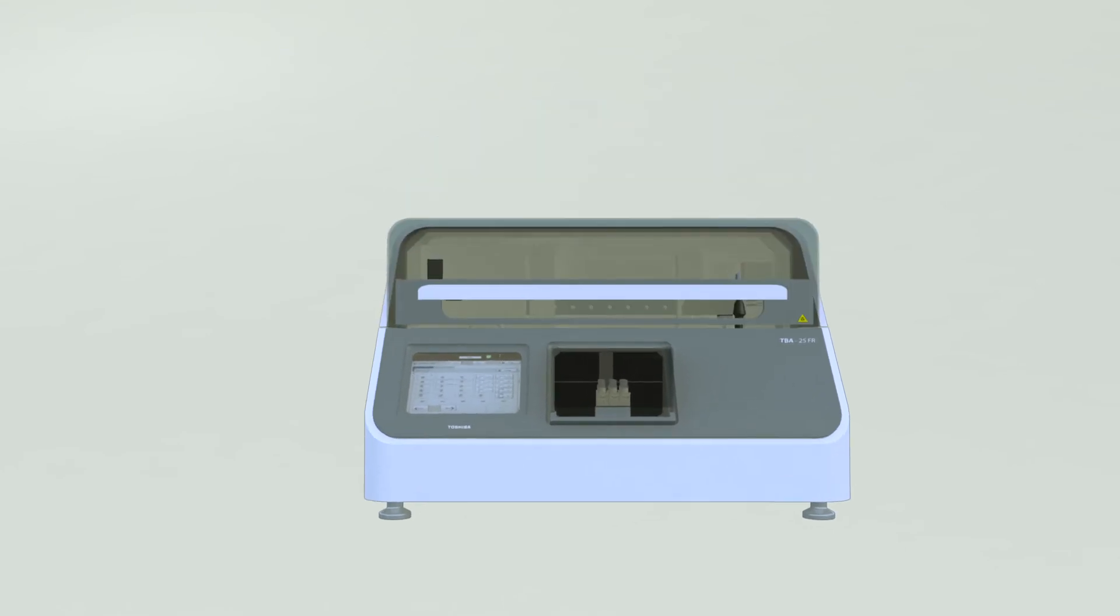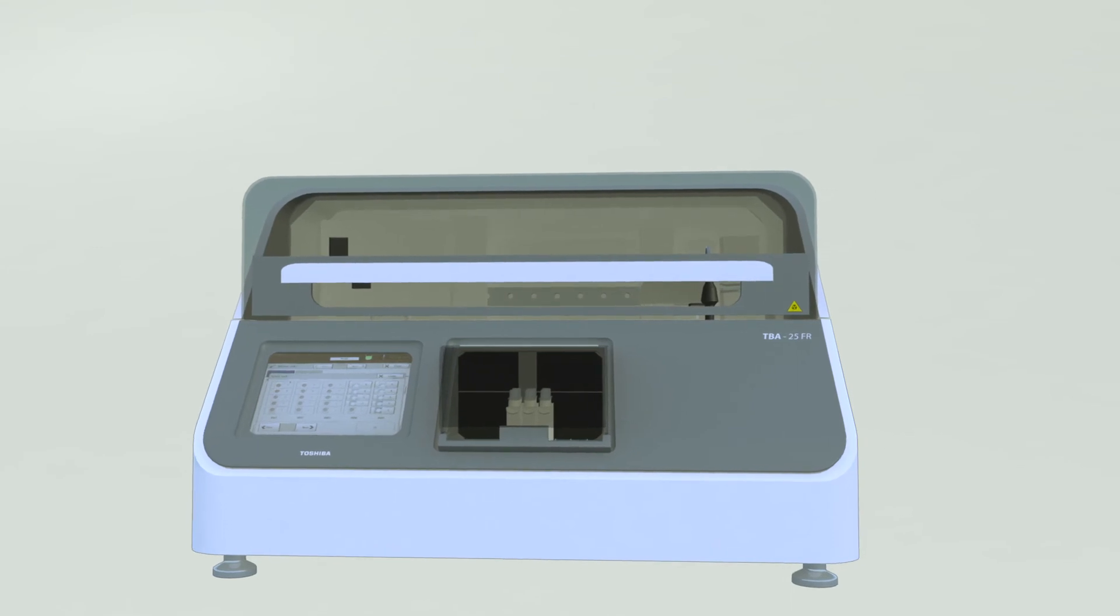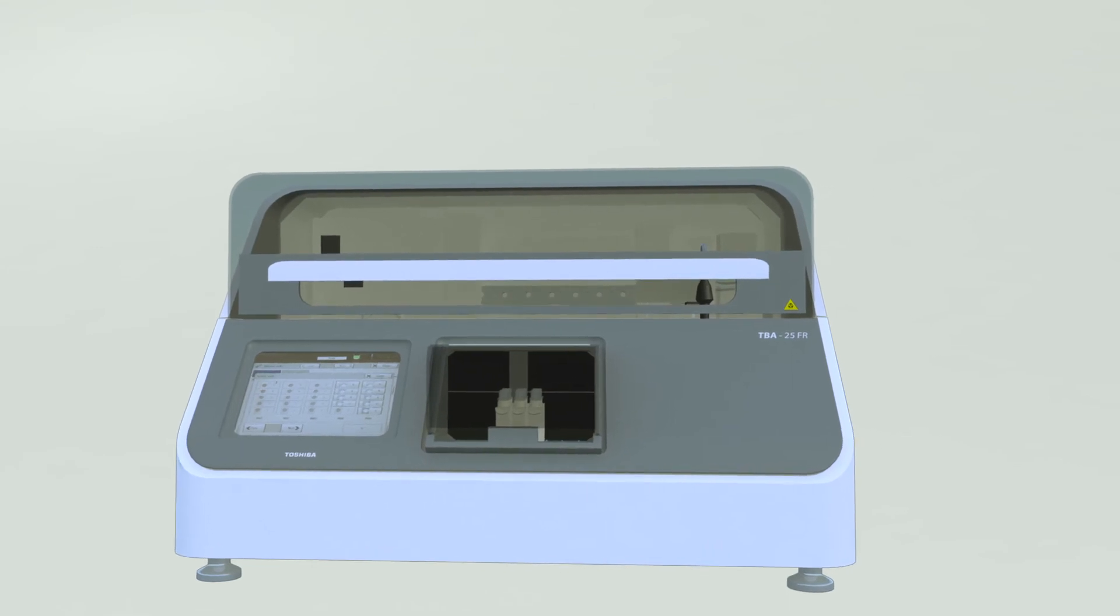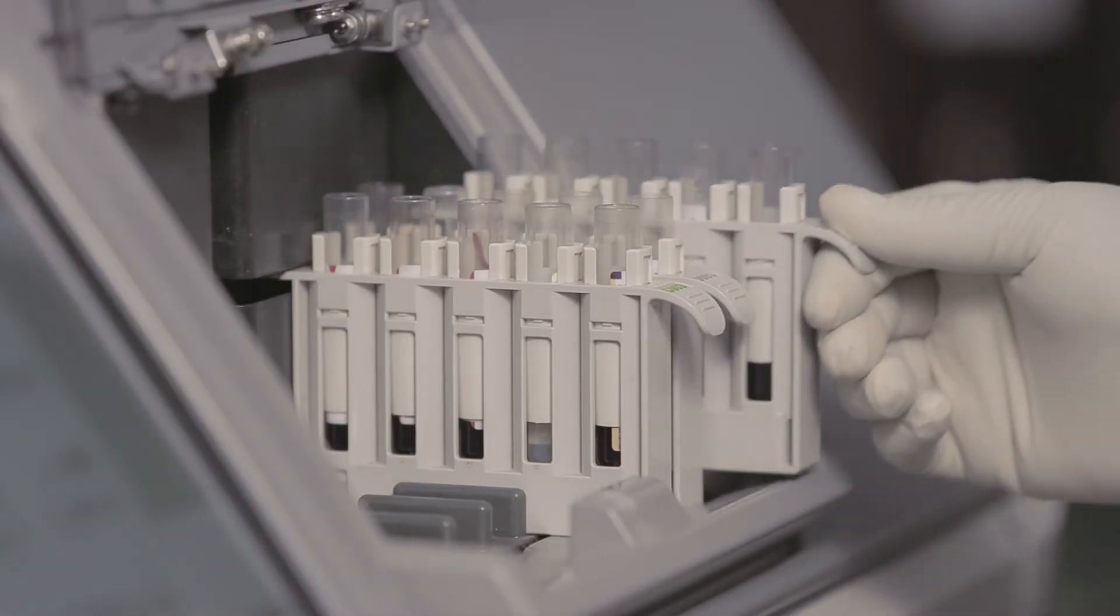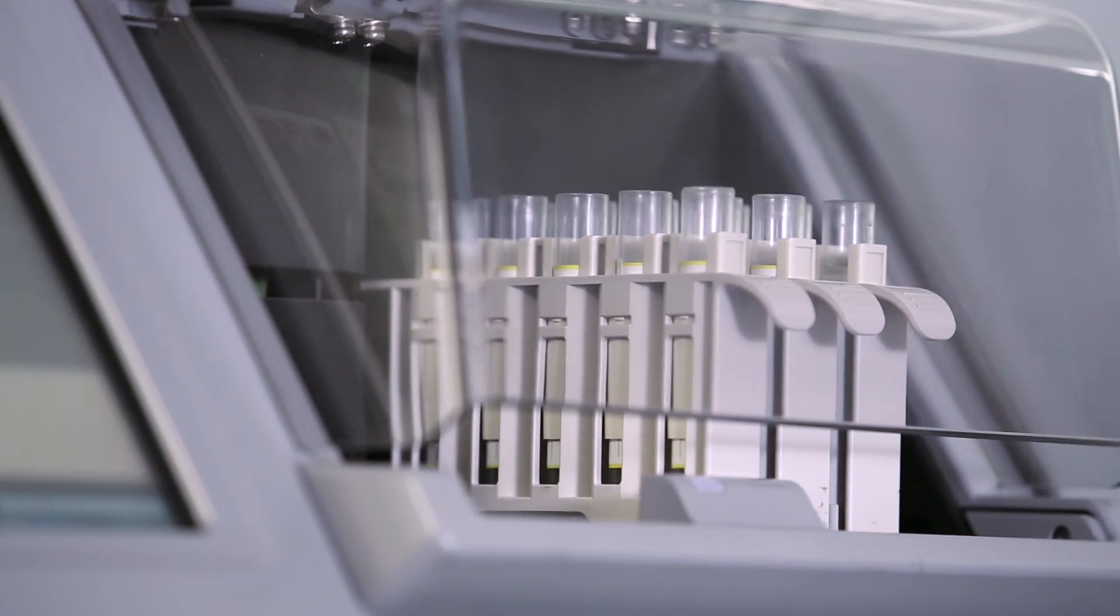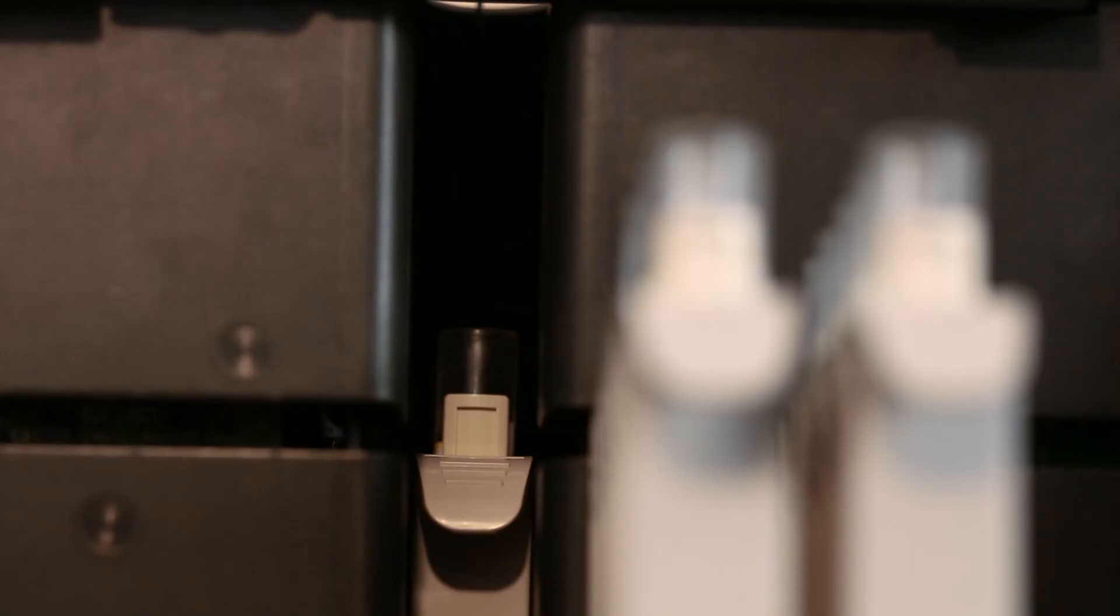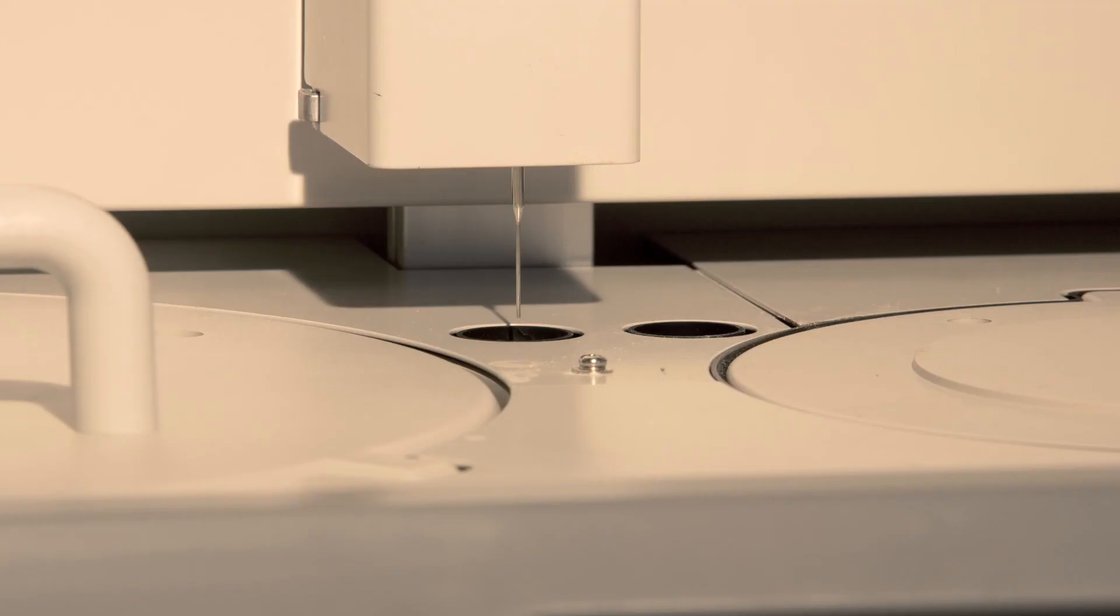Smart sampling function in TBA25FR reduces reagent wastage in case of insufficient sample. The sample is aspirated first and then the reagent. It requires only very low volume of sample.